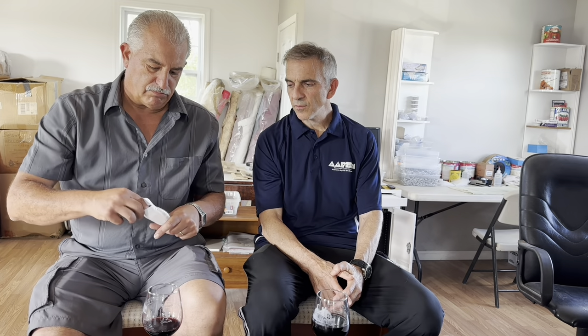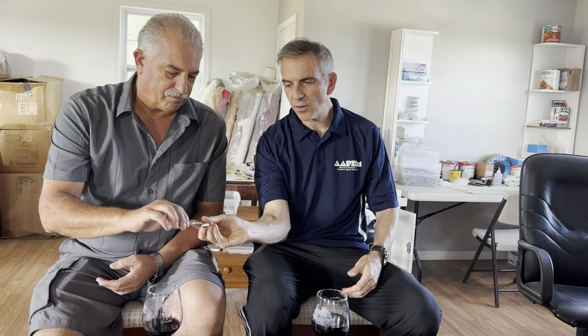Let's move on to nail instrumentation — that's the bread and butter of what we do. Here's your bread and butter: a five, five-and-a-half inch instrument, medium point, box lock, and this one is at a reasonable price. You were bringing up points about hand strength and wear and tear on our joints — males versus females. Obviously males tend to have bigger hands. What are some of the things we should look for with the size of what we're purchasing?